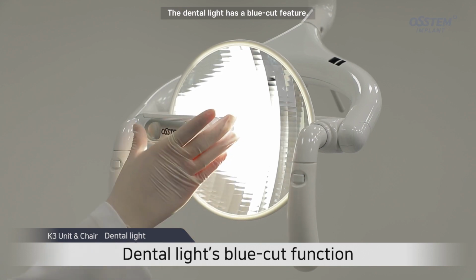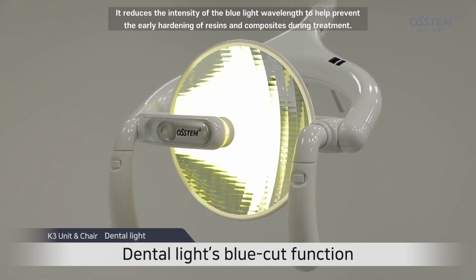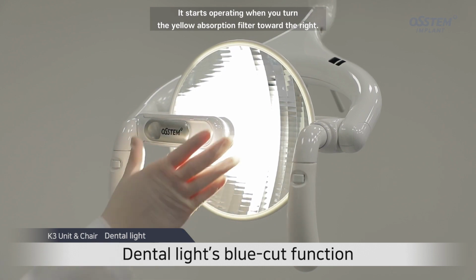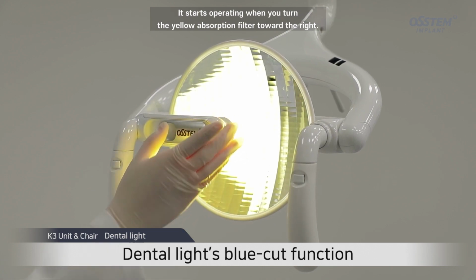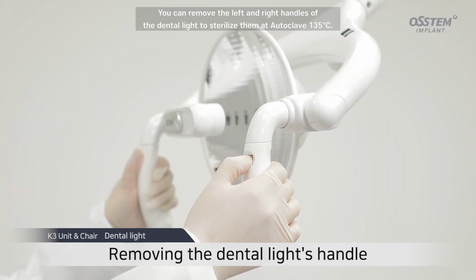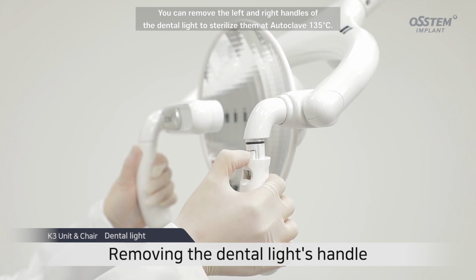The dental light has a blue cut feature. It reduces the intensity of the blue light wavelength to help prevent the early hardening of resins and composites during treatment. It starts operating when you turn the yellow absorption filter toward the right. You can remove the left and right handles of the dental light to sterilize them in an autoclave at 135 degrees Celsius.